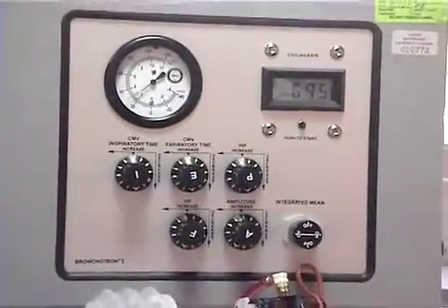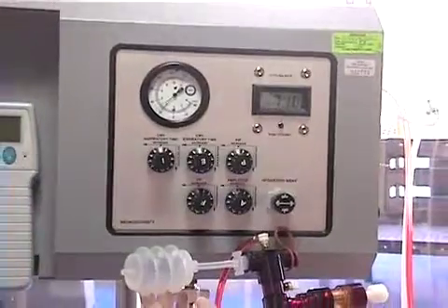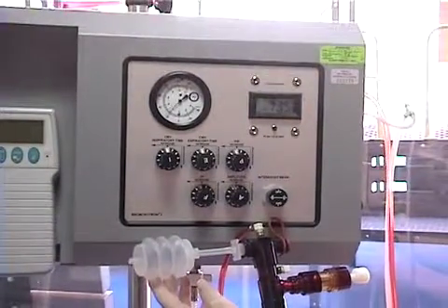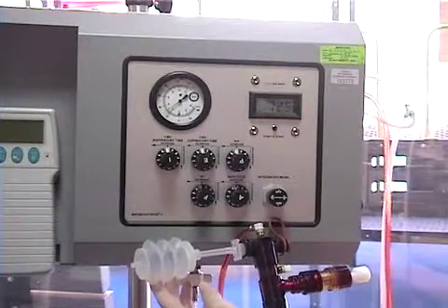As demonstrated with this test lung, the amplitude controls chest excursion and to a degree the depth of lung inflation.